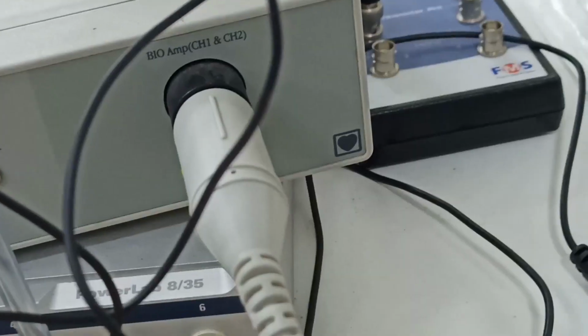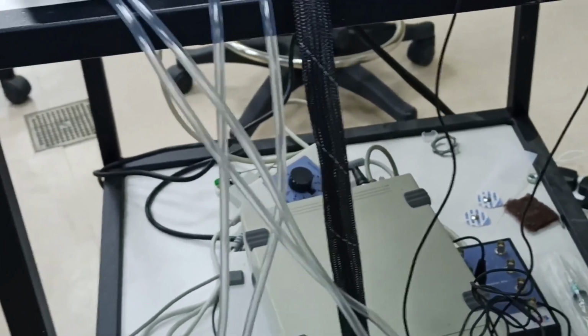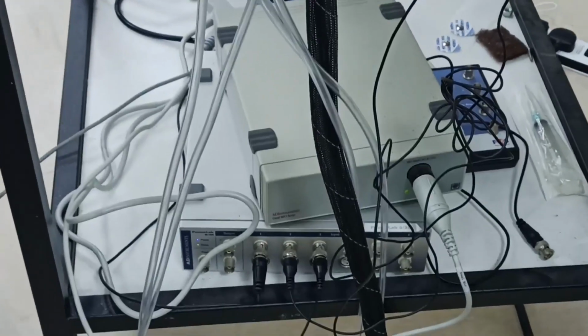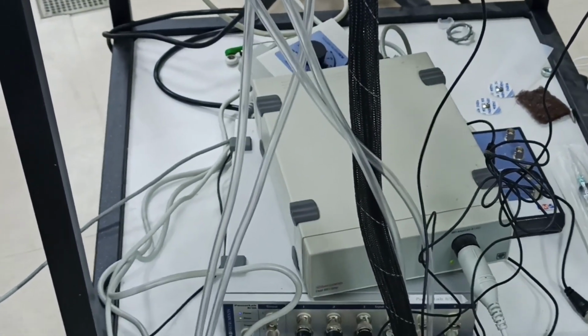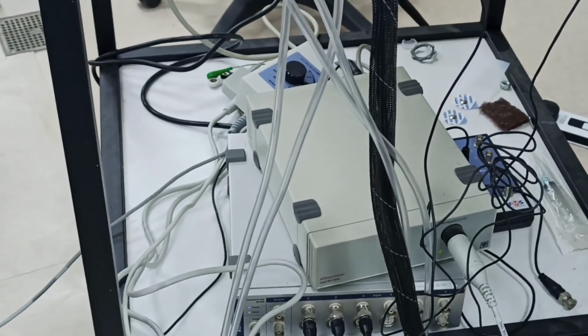If you don't have that mark, you must not attach that device to a human being. Okay? Must not. But what happens if we do? There is a danger that electrical current could pass in the reverse direction and the person could end up in ventricular fibrillation. Yes, especially fibrillation, asystole, anything could happen.